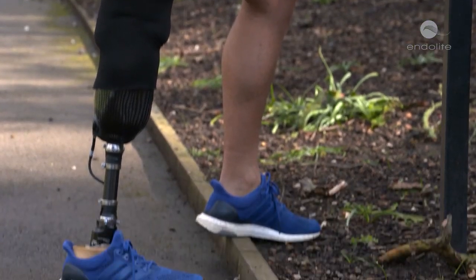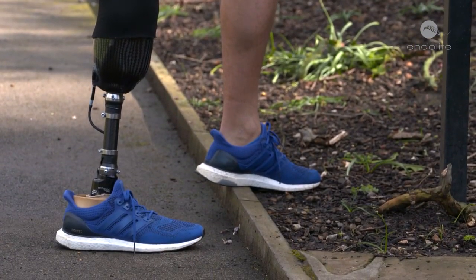You get all the advantages of a hydraulic ankle, which reduces the stump-socket interface pressures and provides better ground compliance, all coupled with the advantages of elevated vacuum.